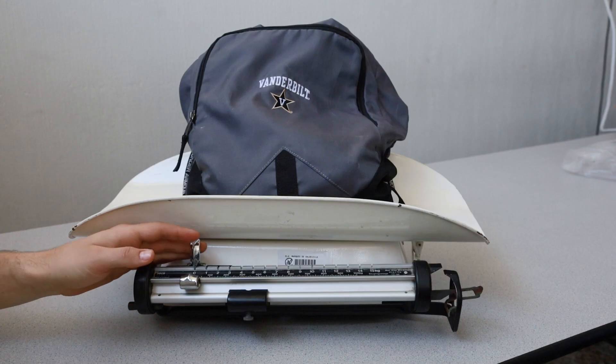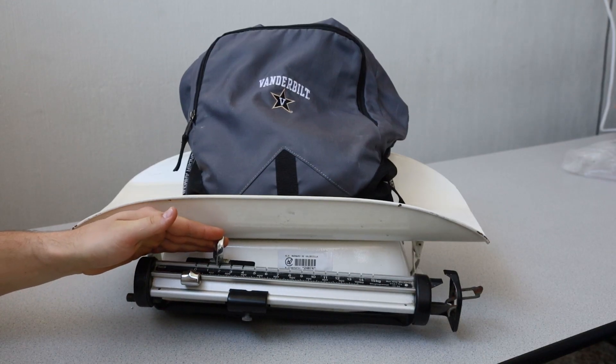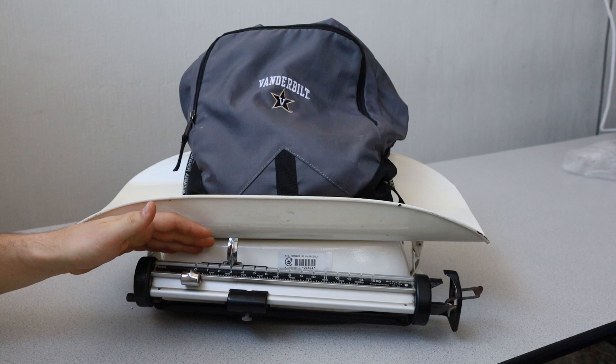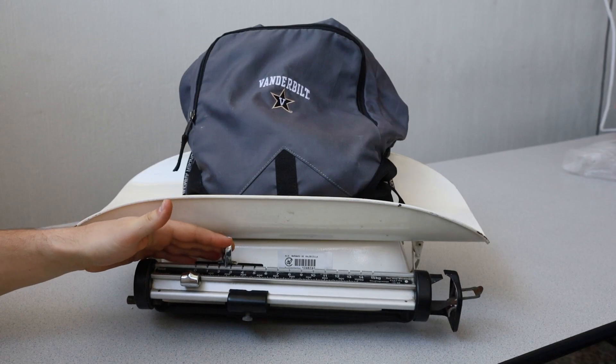To level the beam balance, begin by slowly sliding the large weight to higher and higher increments. The large weight should be slid to the highest possible position until the beam balance falls. Leave the large weight at the position just before the beam balance falls.